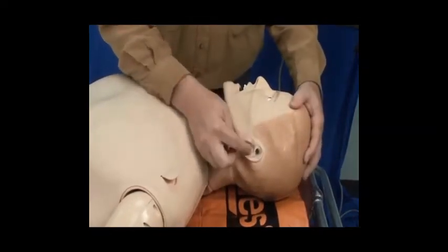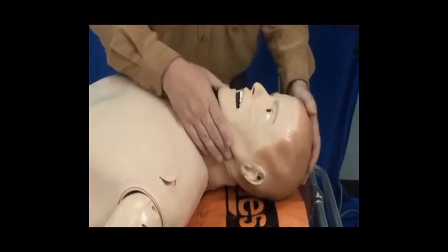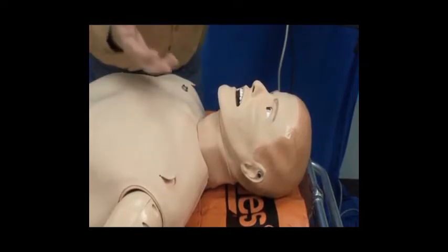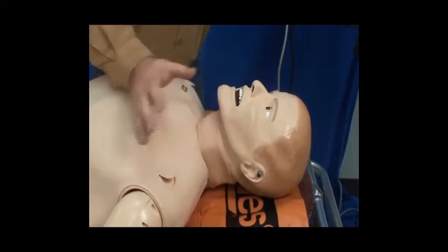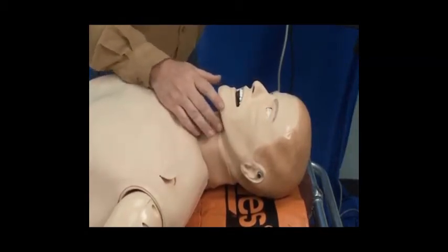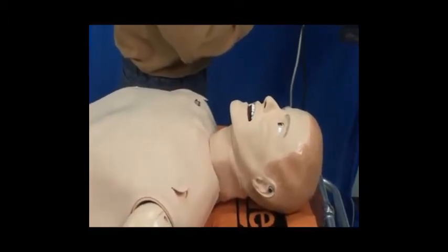The ears will also have fluid, and there are also speakers on here as well. This patient will speak, and it can be done through 2 different mechanisms, either by pre-programmed voice or directly through the instructor from another room. For an example, I'll show you some of the vocal features this mannequin has.